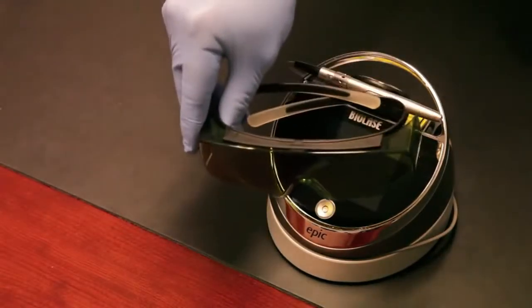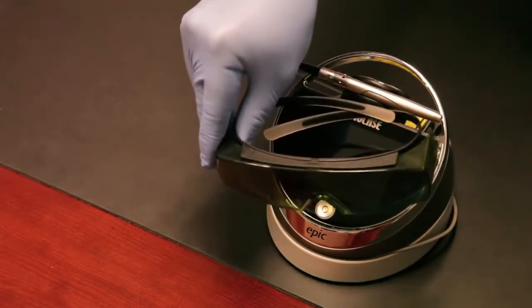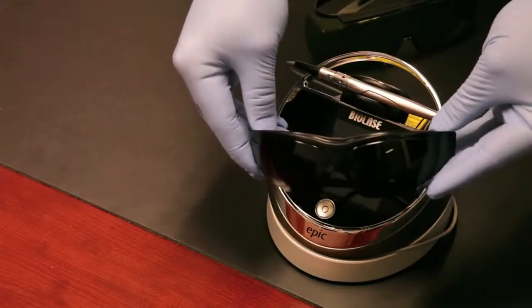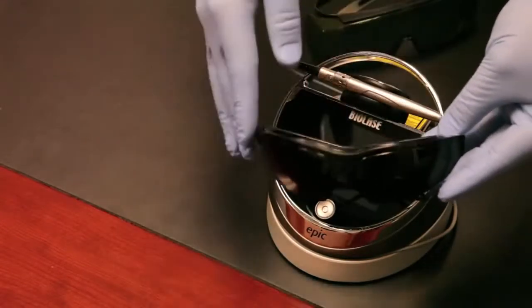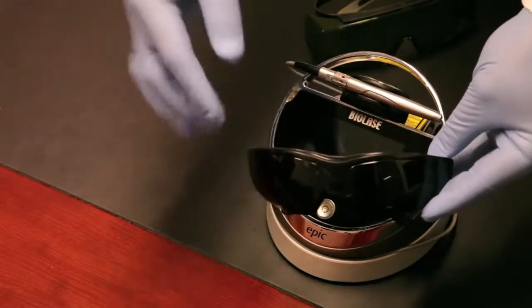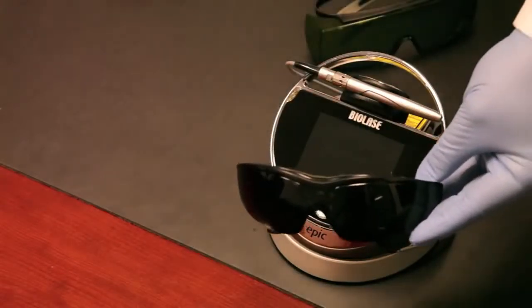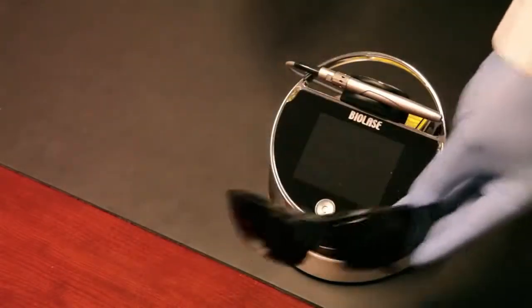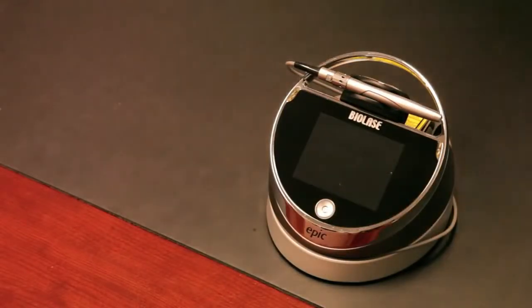You also get three pairs of safety goggles: two pairs of the diode protective goggles against the wavelength and a darker pair for the patient. We found that by having this darker pair it's better for the patient. They can relax and take it easy during the procedure, plus it's more protection with the darker lenses.